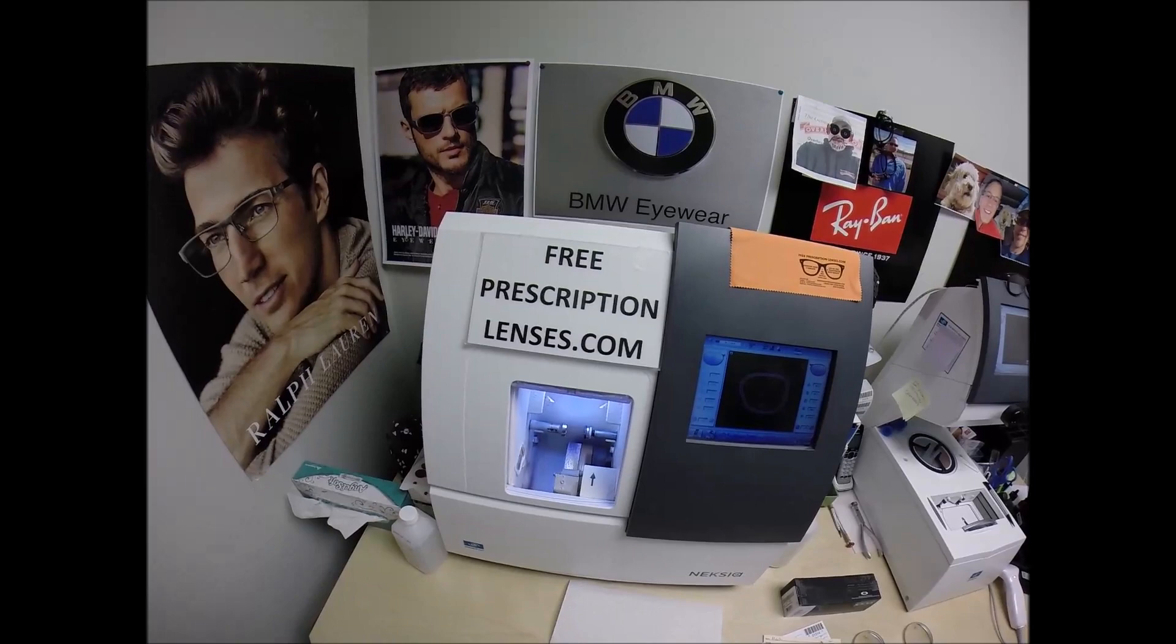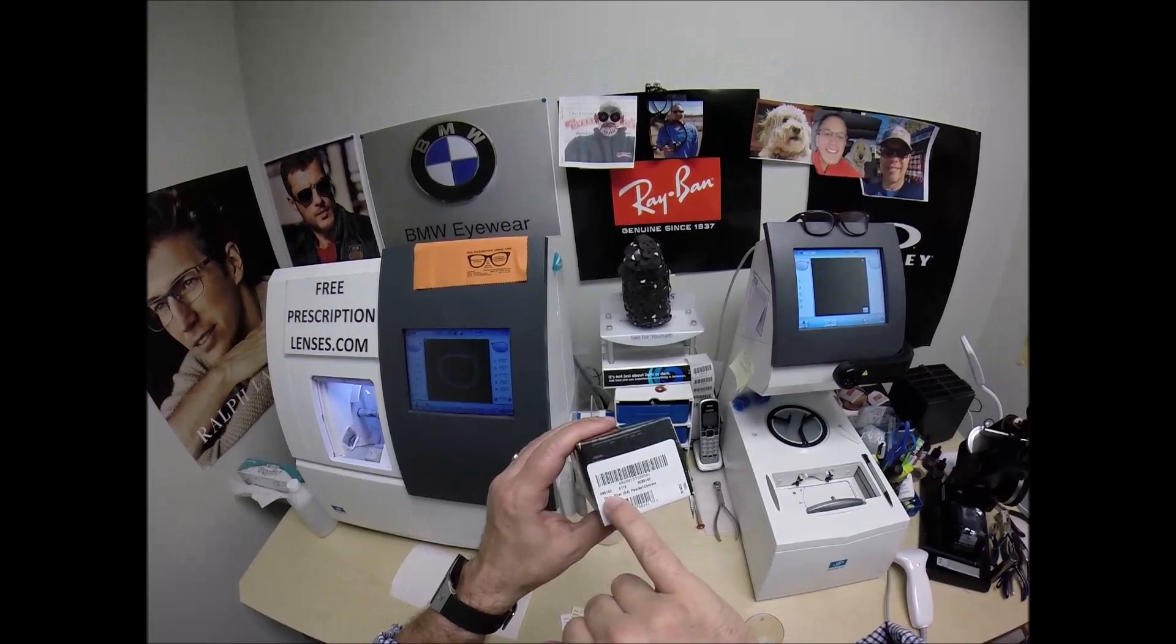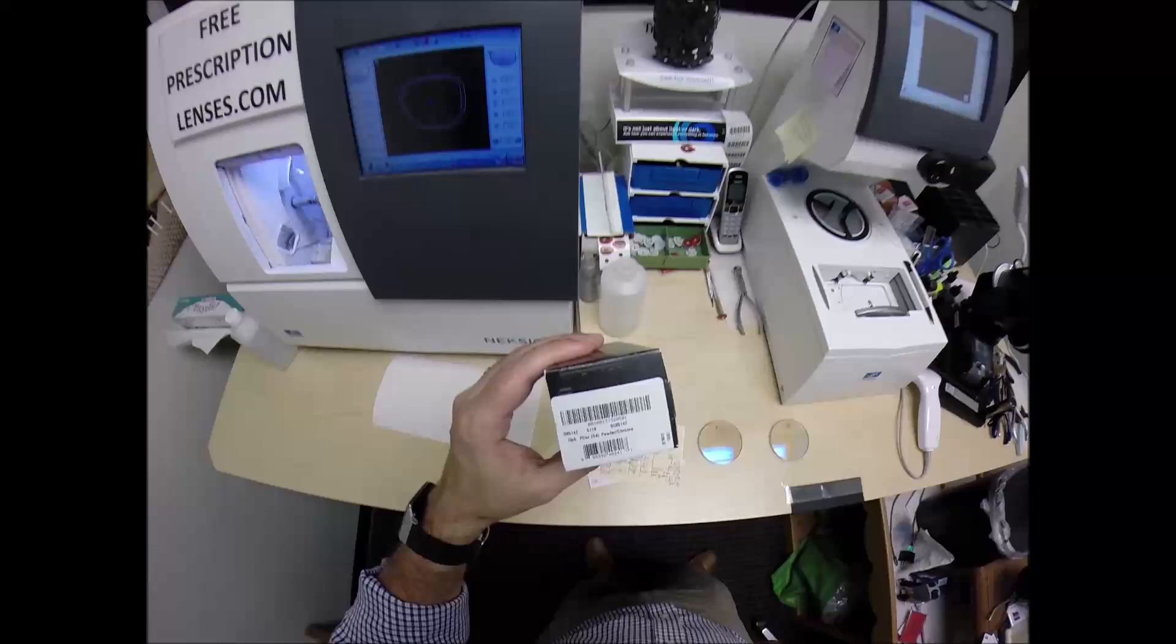Mark in Fort Myers, Florida. See more better with freeprescriptionlenses.com and thank you for your purchase of the Oakley 5142, the Pliers in the 54 eye size and color pewter chrome in the 02 color code.